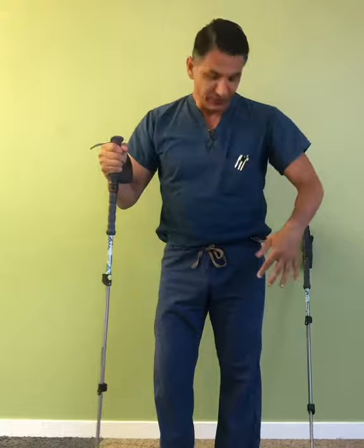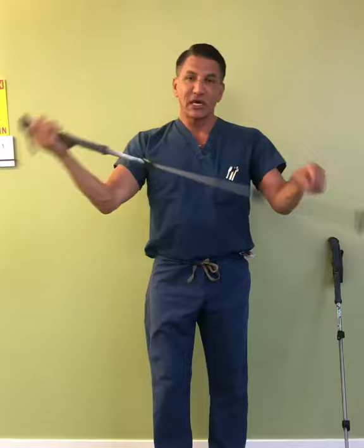This is how it goes. You can break these down — like this — and put them in your carry-on. Single walking stick, used on the opposite side of where it hurts. Thanks.